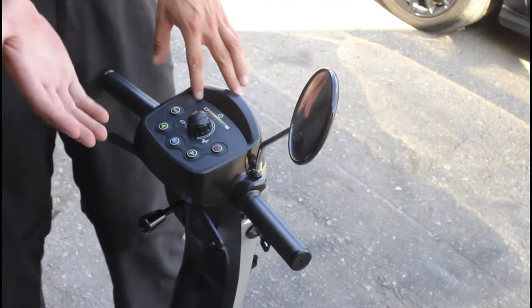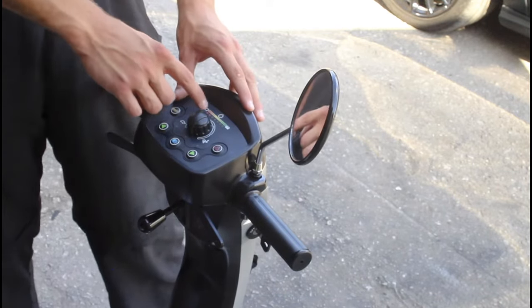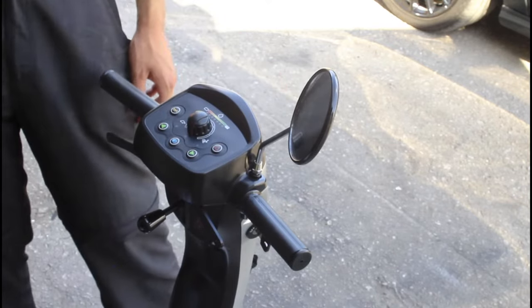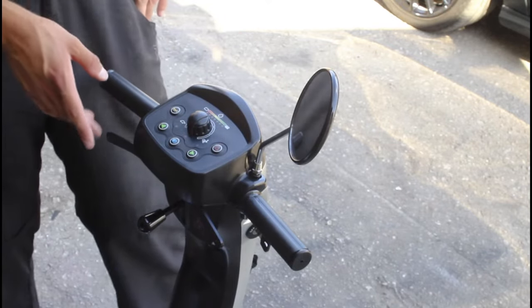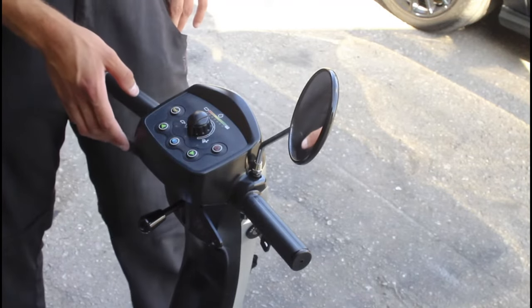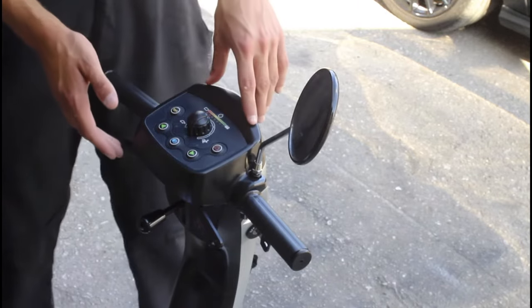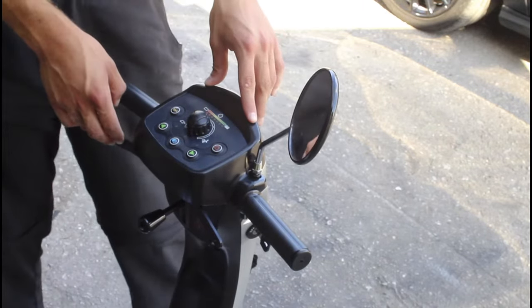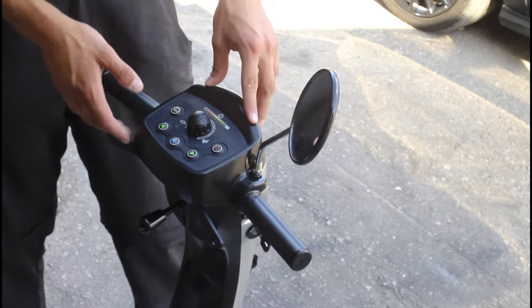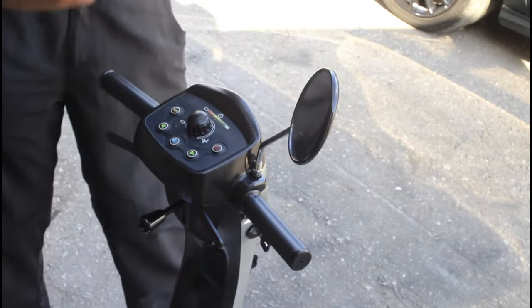On this Invacare Leo, I've tried to get the camera in position so you can see we've got a total of one battery bar down. I'm pretty sure these batteries are only about a year old so we should be okay — I've run a drop test on them and they're showing back as okay. A sure sign to watch for is how fast the batteries are going down.